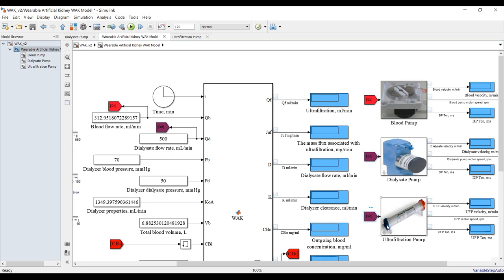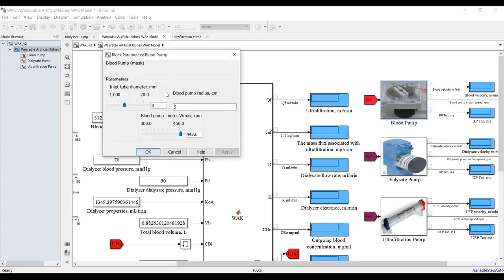Double-clicking here, you can assign some inputs. What is the inlet tube diameter? The tube diameter is in millimeters — this is for the blood pump. What is the radius of the pump? No more than five centimeters, as you can see from the photo. The blood pump motor RPM comes from the manufacturer's specifications.